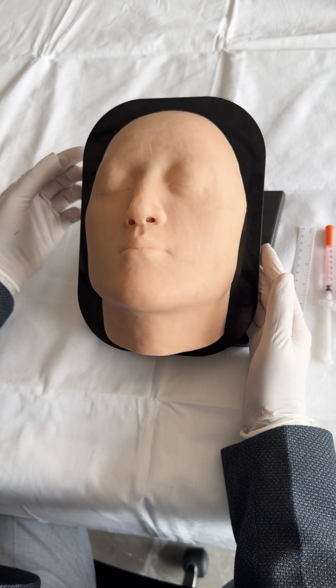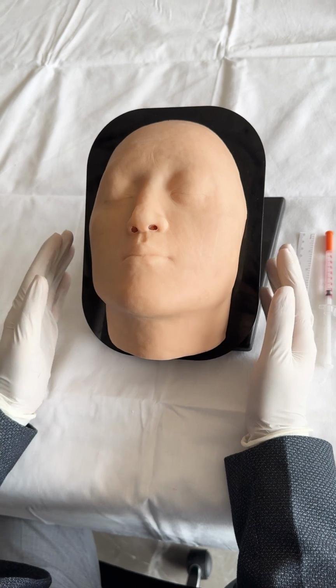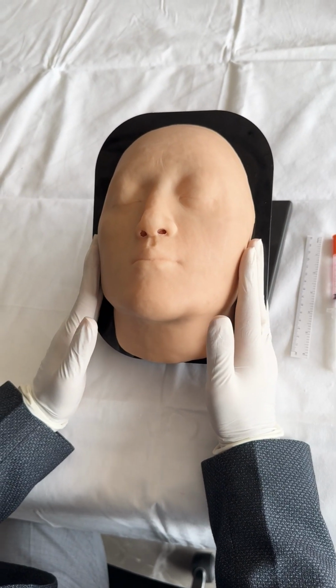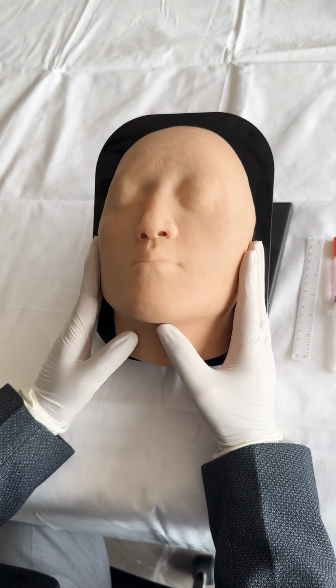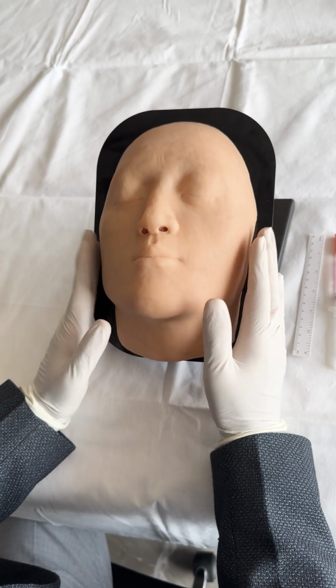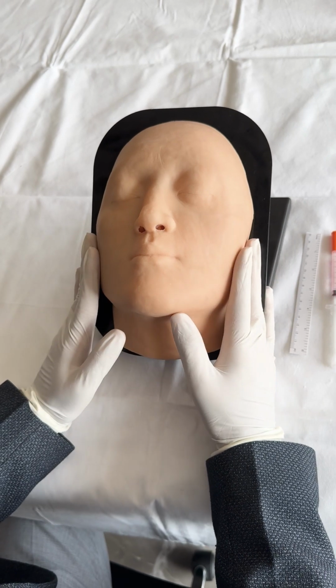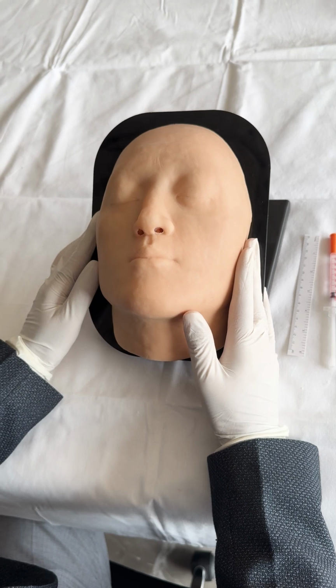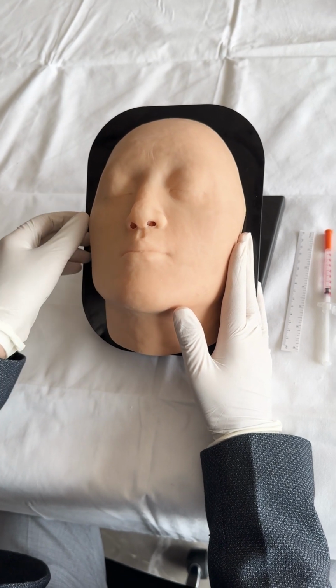In this video we will discuss a facial simulation model, known as FaceSim. As you can see, this is a simulator model which is going to mimic the various features of the face. This model has a movable base, a realistic Asian male skin, and beneath the skin are the deeper layers in the model.